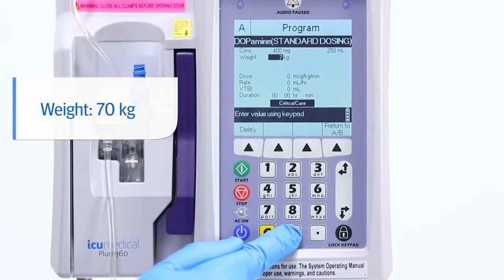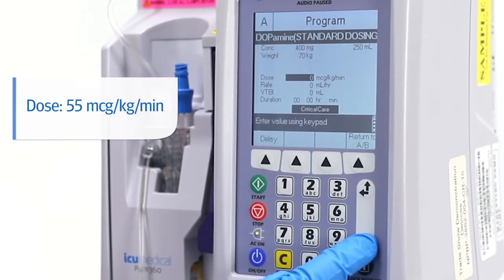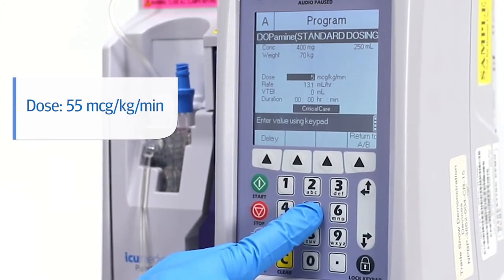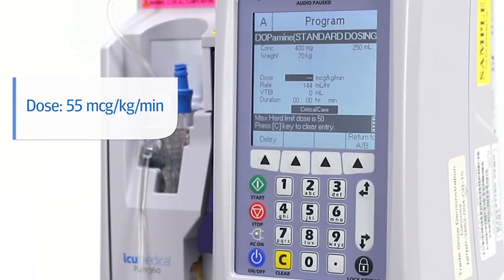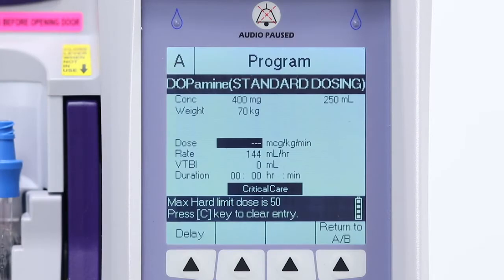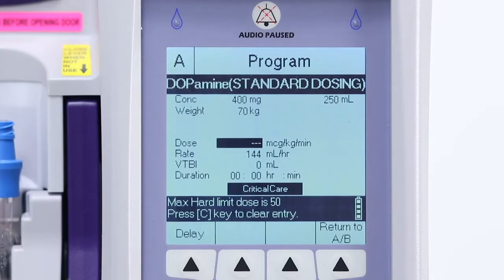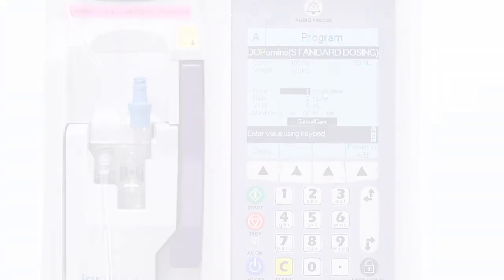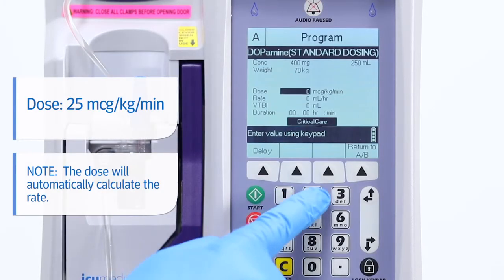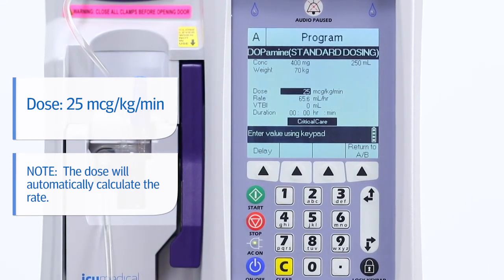When prompted, enter a weight of 70 kilograms. Using the select down key, highlight the dose field and enter a dose of 55 micrograms per kilogram per minute. Three dashes will appear in the dose field with a message: max hard limit dose is 50 micrograms per kilogram per minute. You'll need to press C to clear the dose field entry and enter a corrected dose of 25 micrograms per kilogram per minute, and the rate will automatically calculate.